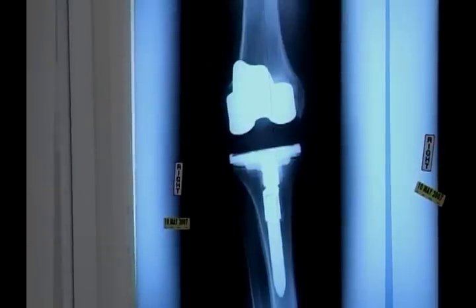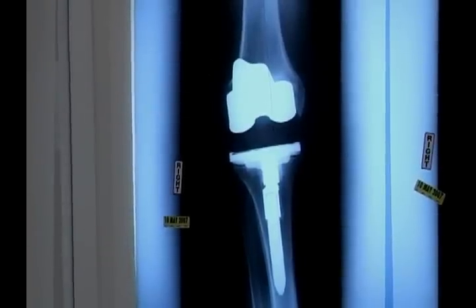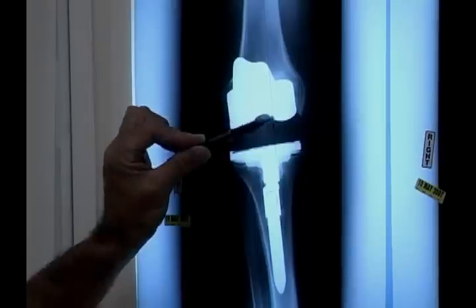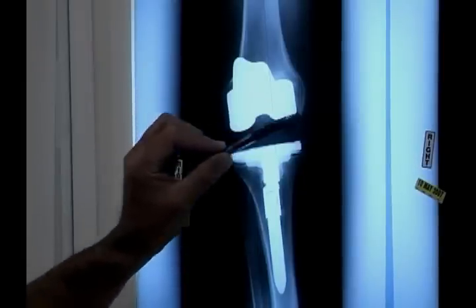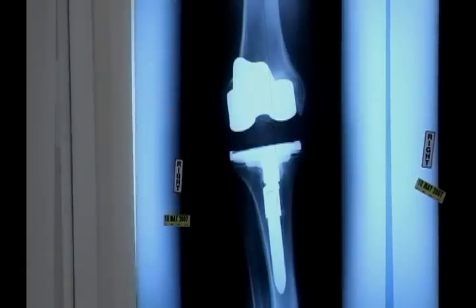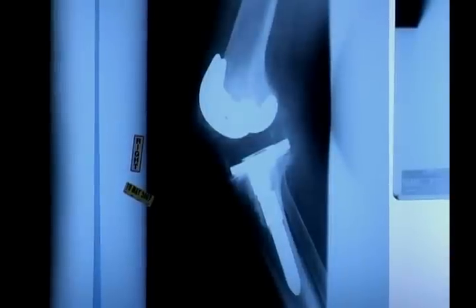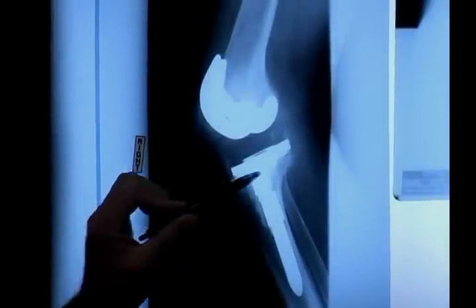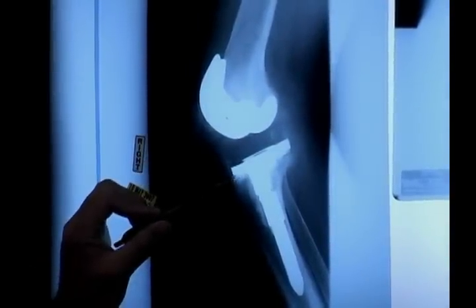The femoral component was not revised at the last surgery, but you can also see this has subsided into some varus, seen here at the medial femoral condyle. As we move over to the lateral, again we see a breakdown on the interface on the tibial side.